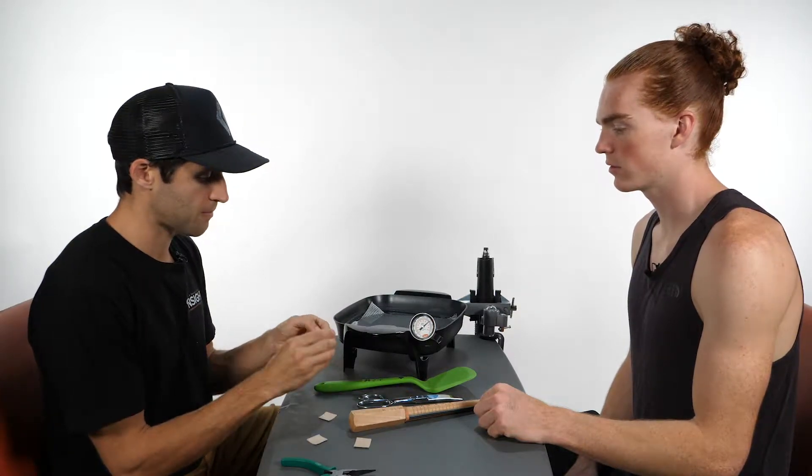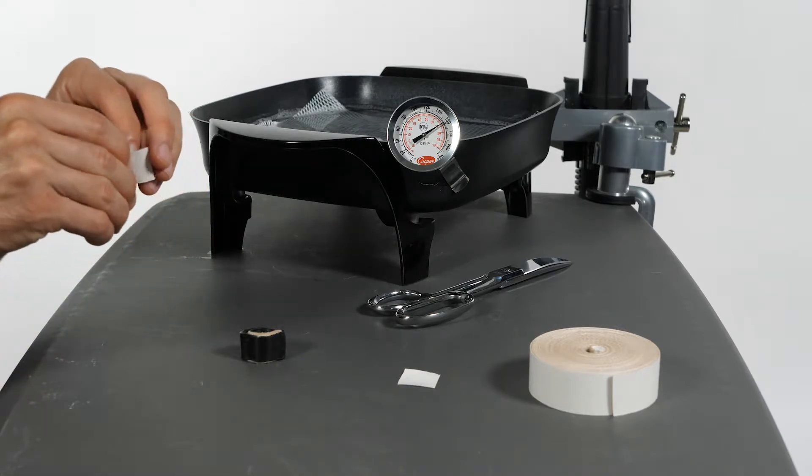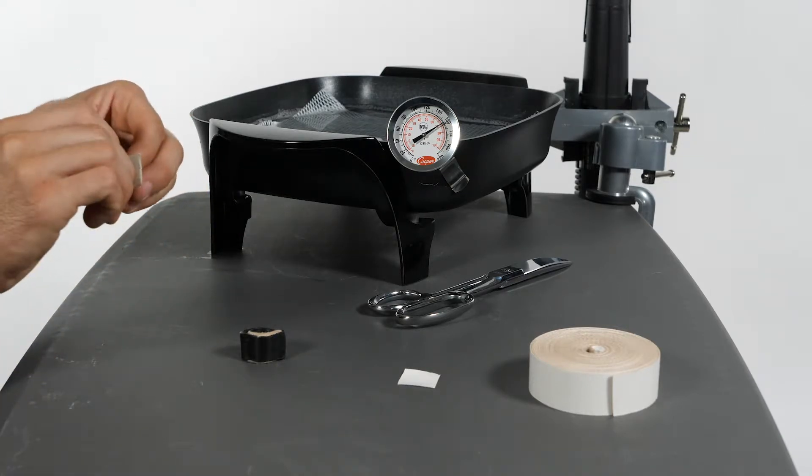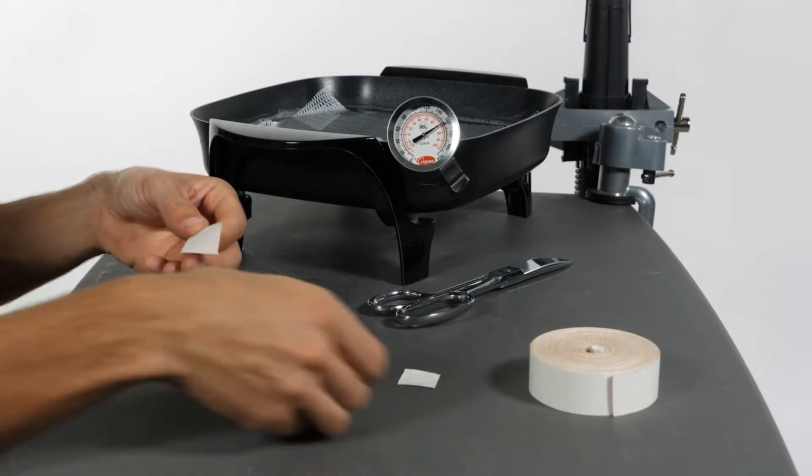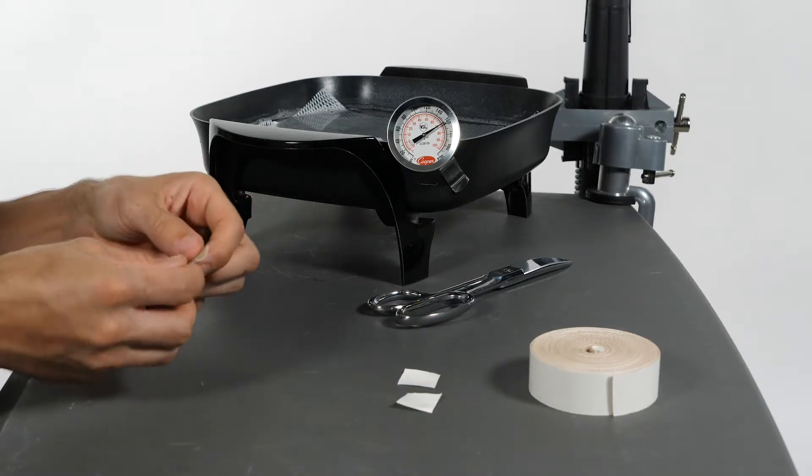So let's put that on there. To improve the comfort as well as decrease skin breakdown while wearing the pulley protection splint, you'll want to put some type of surface such as moleskin on the inside of the pulley protection splint.